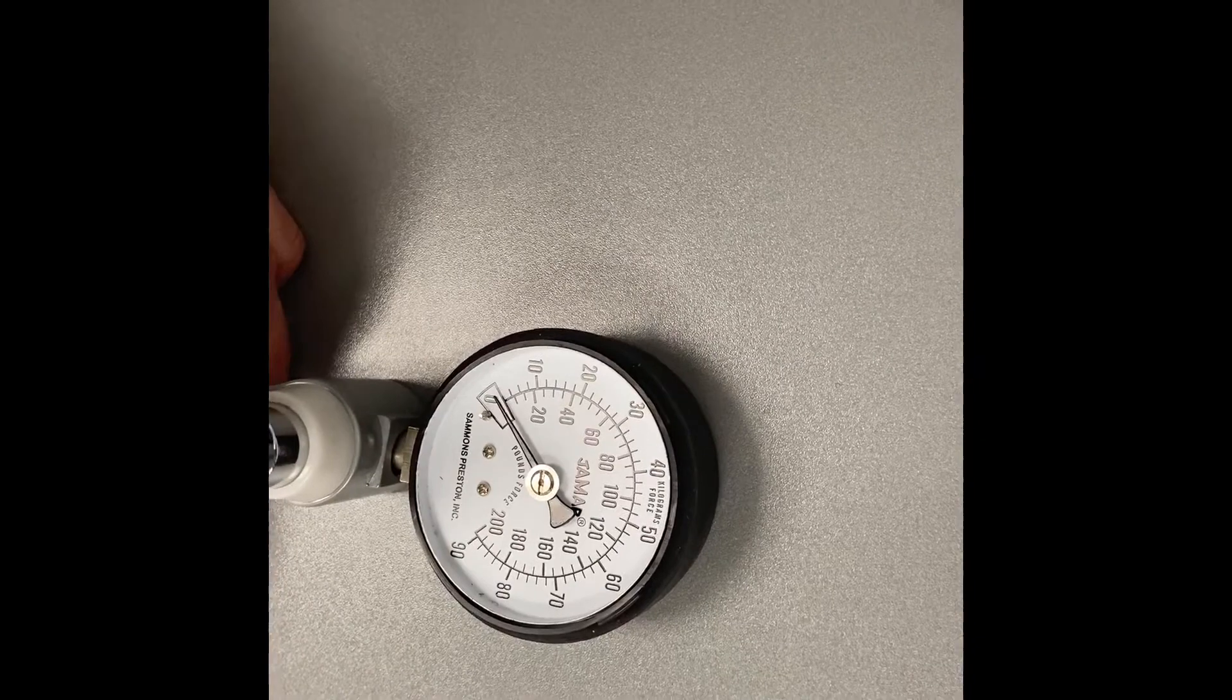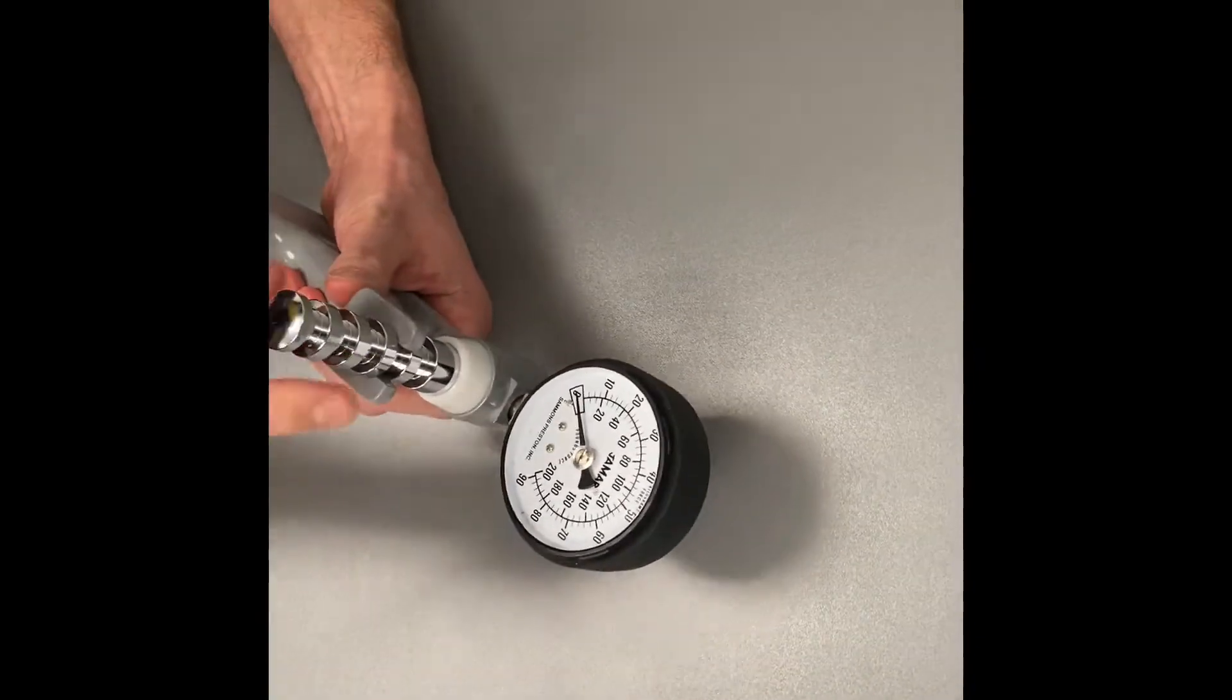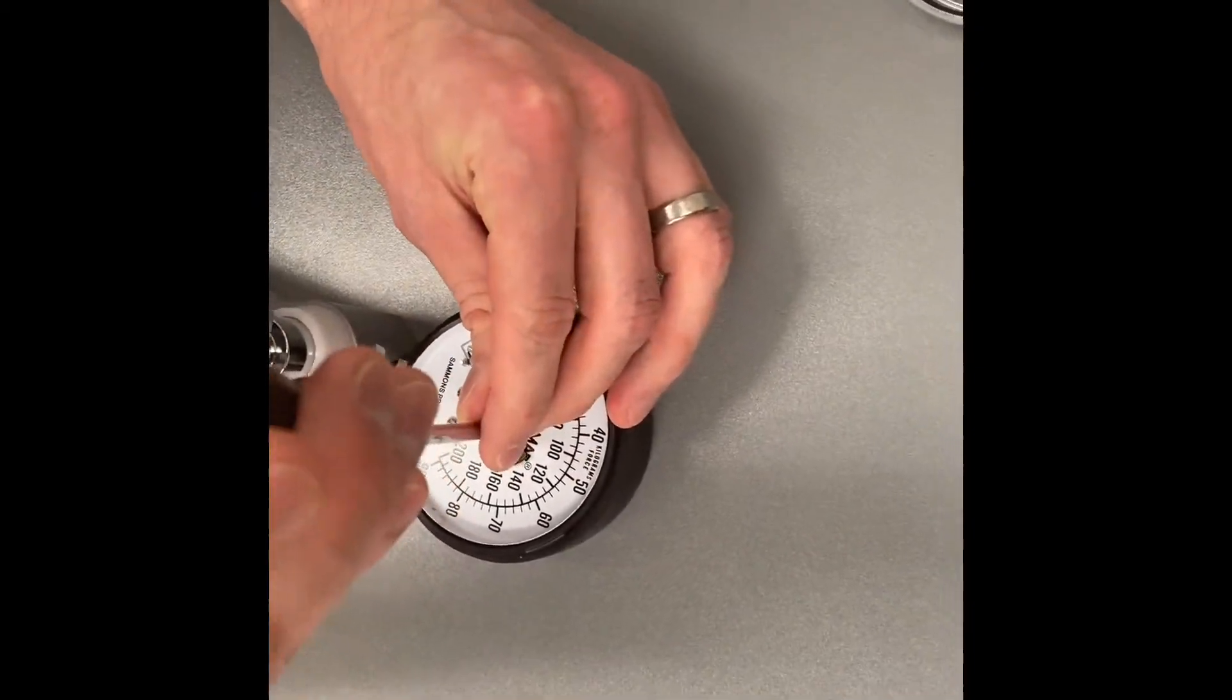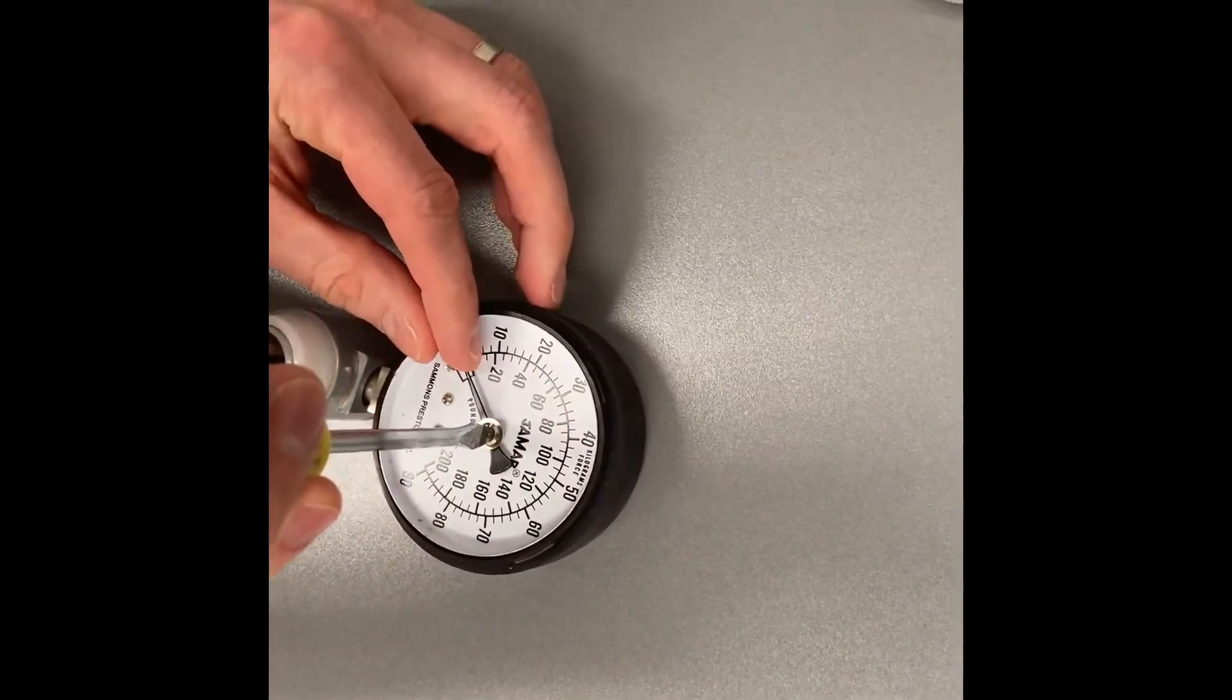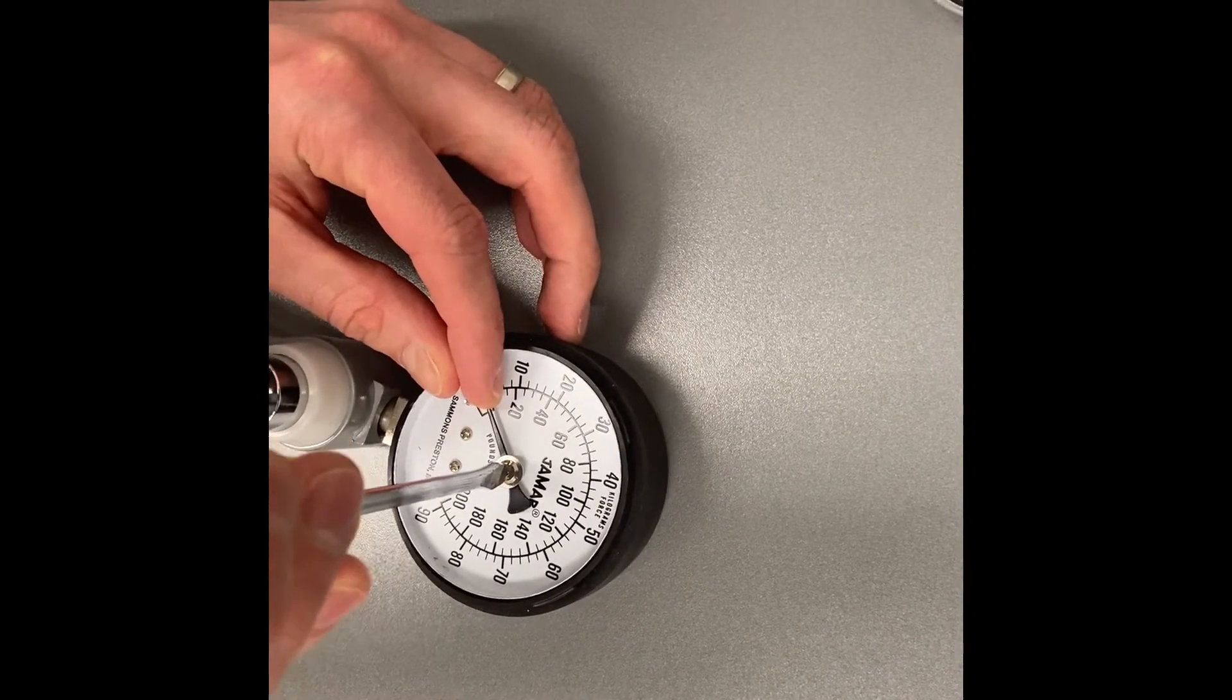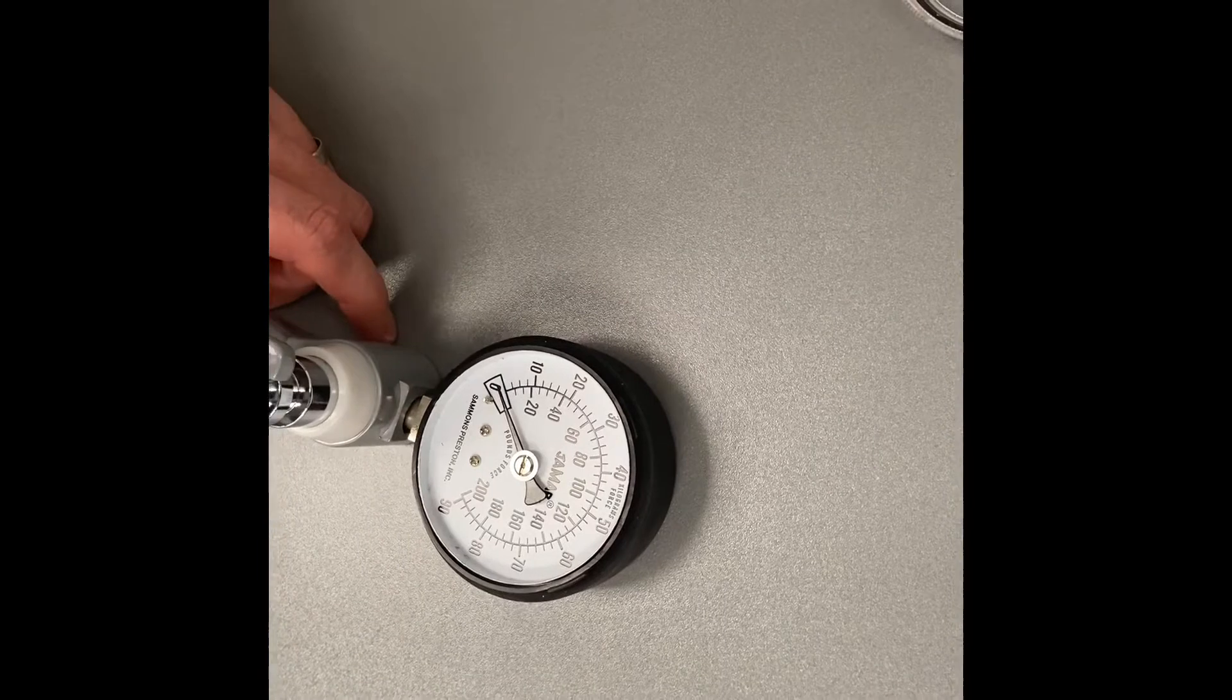And then we're actually going to test that again. So we test it with the 10 kg weight and still probably find that it's a fraction high. So come back and just edge it down ever so slightly. And then you would go back, test it with the weight again and see if you're close to right yet.